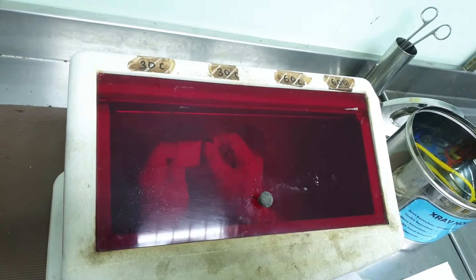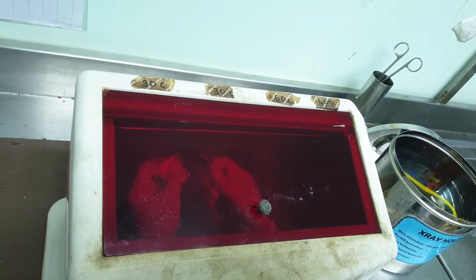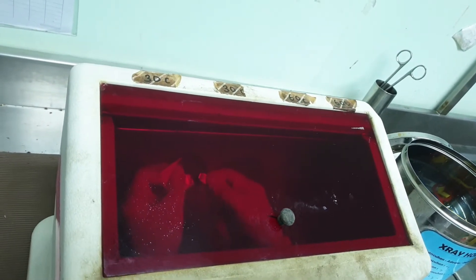Okay, that's the film. Use the clipper to clip the film and take it out. That's the film, and you want to place it in the developer for 30 seconds. Start counting: 1, 2, 3, 4, 5, 6, 7, 8, 9, 10 — remember to keep on shaking it, do not keep still.